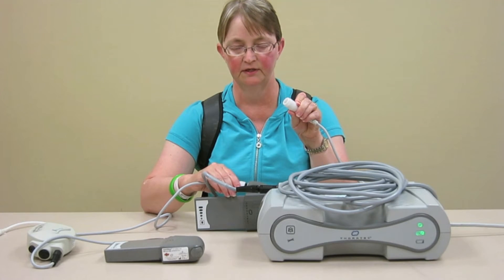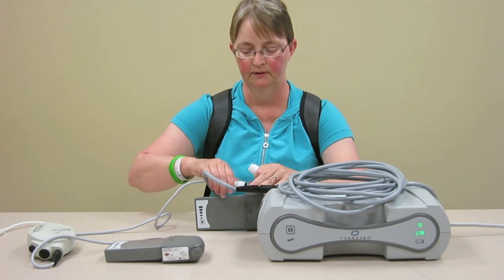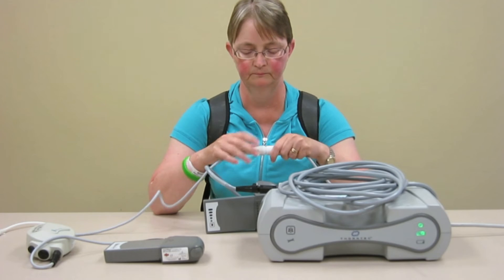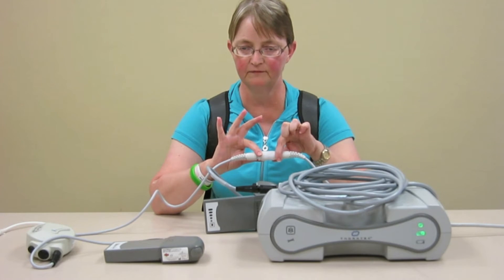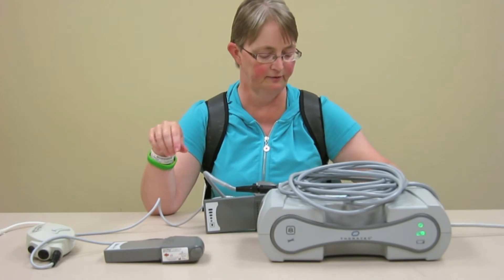Take a quick look and make sure that you've lined up the half circle here, and you want the other half to be on the top. Don't be alarmed if the alarm goes off — that's just to make sure you do it quick enough, but you have lots of time. It's running on the other battery.